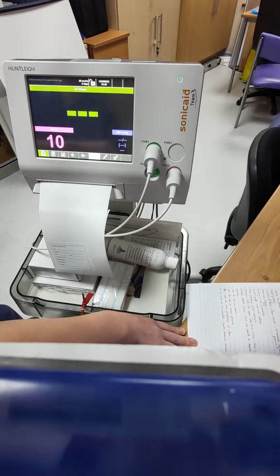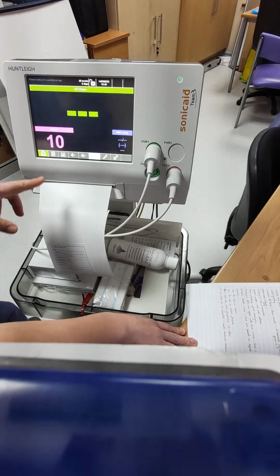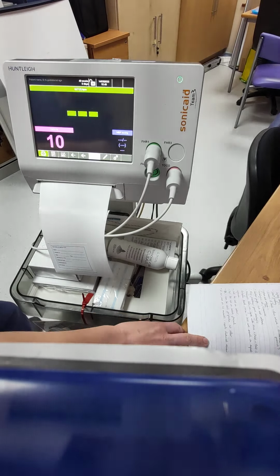It's not for use in labour, it's not for use in the latent phase. It can be used pre-prostin, but not after. And if the Dawes-Redman has not met at 60 minutes, then you need a clinical review.